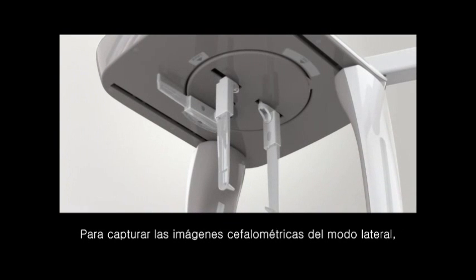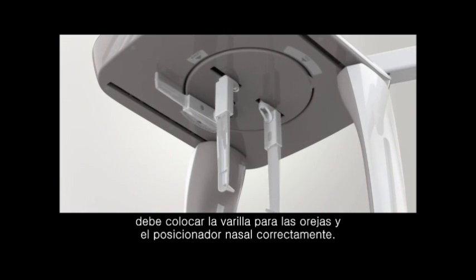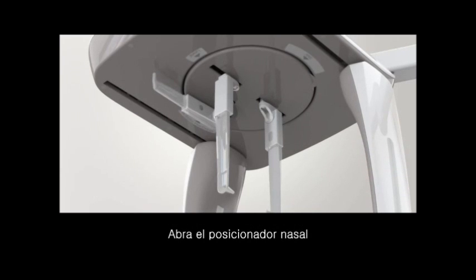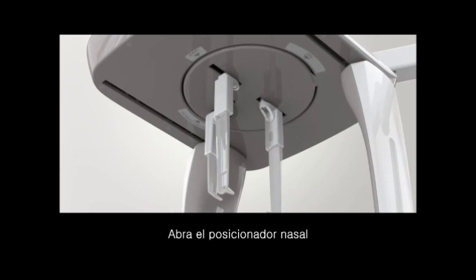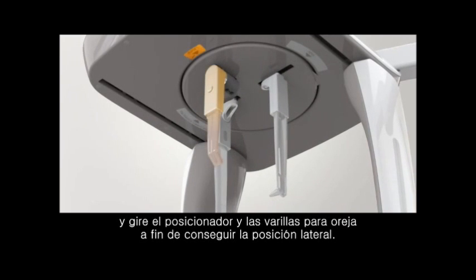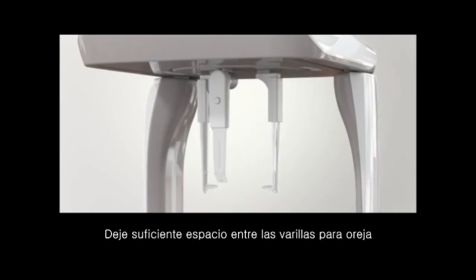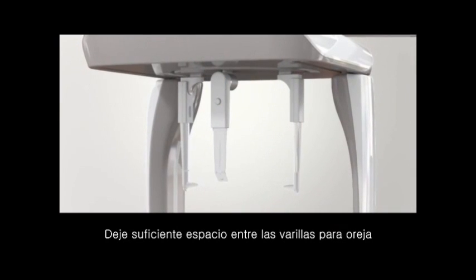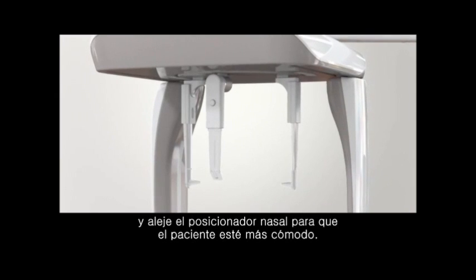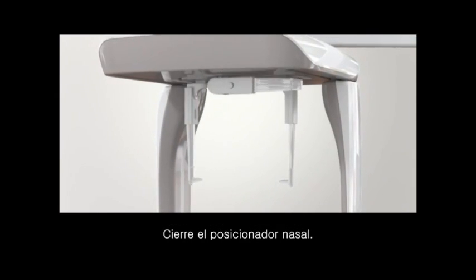To take the CEF images of the lateral mode, you have to locate the ear rod and nasal positioner in proper position. Unfold the nasal positioner down and turn the ear rod to locate the lateral position. Leave enough space between the ear rods and move the nasal positioner out for patient's convenience. Fold the nasal positioner up.